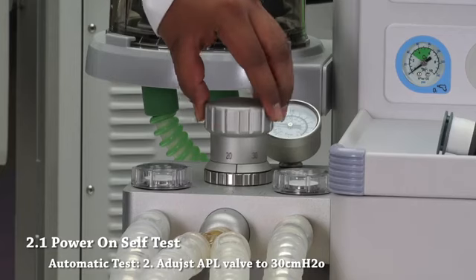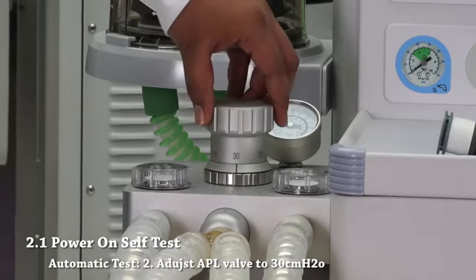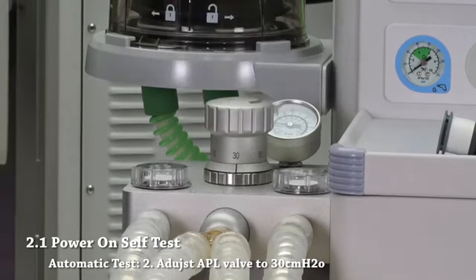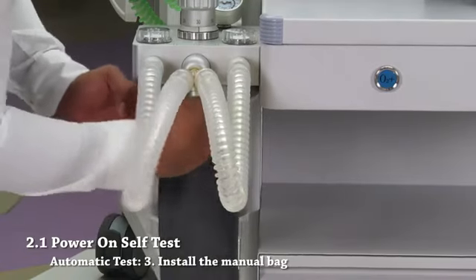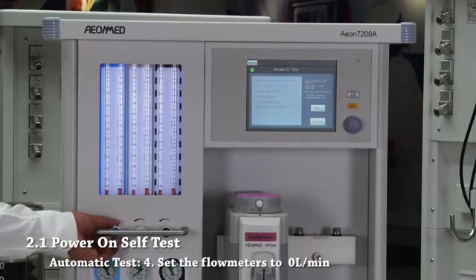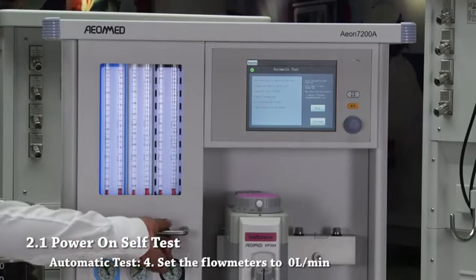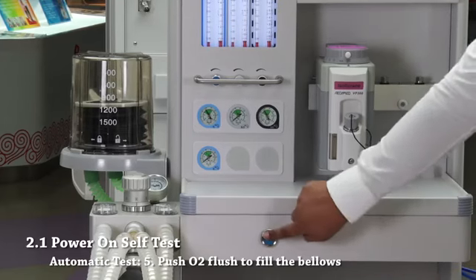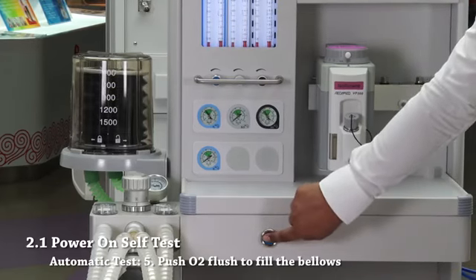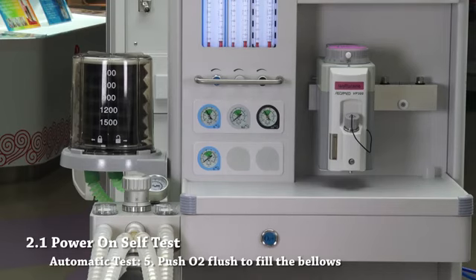Step 2. Adjust APL valve to 30 cm H2O. Step 3. Install the manual bag. Step 4. Set all flow meters to 0 liters per minute. Step 5. Push O2 flush button to fill the bellows.